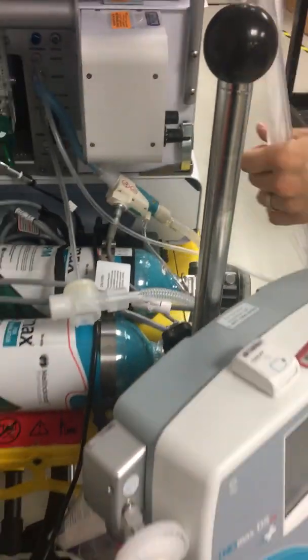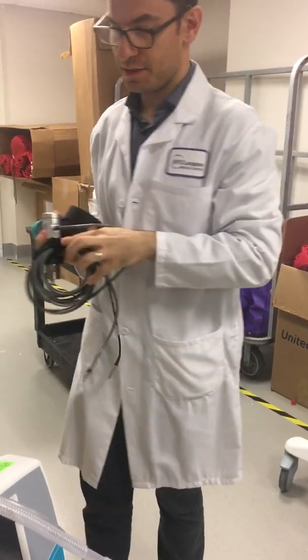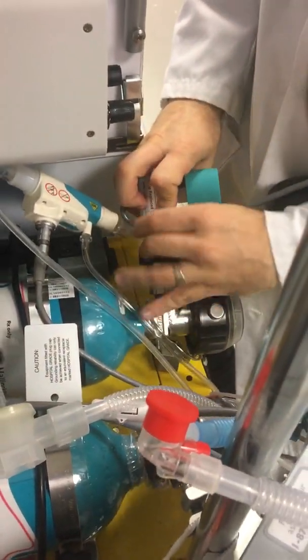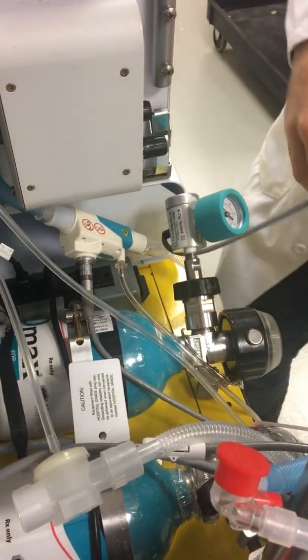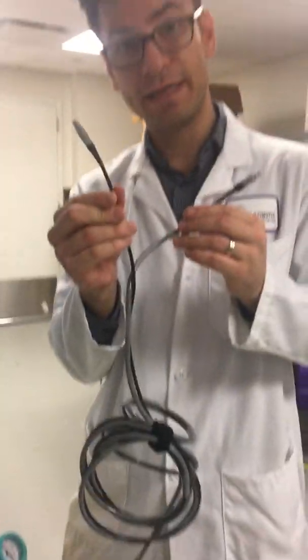This is a special regulator for our nitric oxide tank. This is our D-size nitric oxide transport tank. The regulator goes on and over the tank — we just twist it on and connect it to get a nice tight seal. It comes with an infrared cap; this cap goes over the metal piece at the notch right here and fits over. There's a chip inside that reads the hours the nitric oxide has been used. This is the infrared cable from the regular nitric oxide system, and we connect it to the infrared cable connection. The regulator hose goes in the back just like we do with nitric oxide.